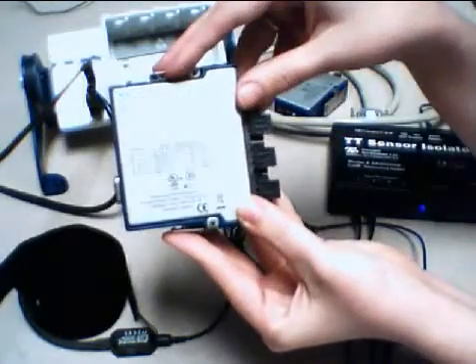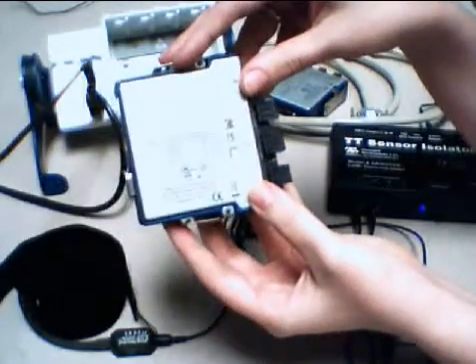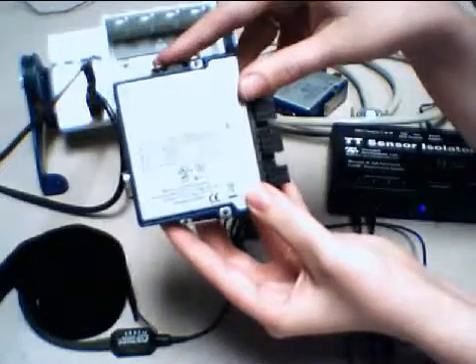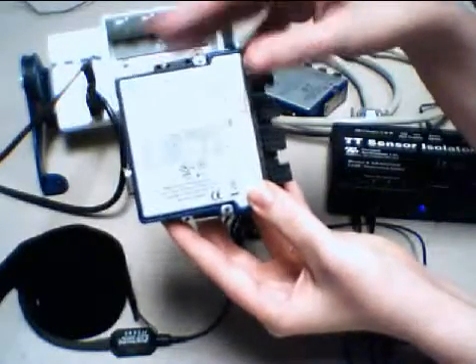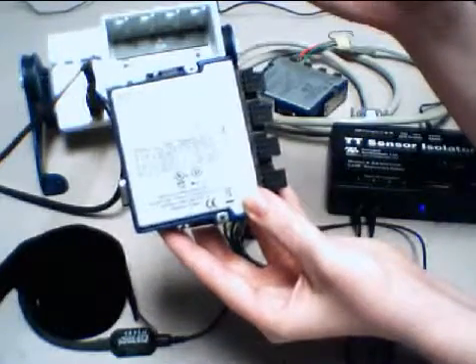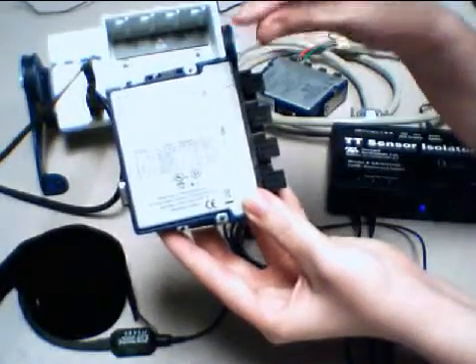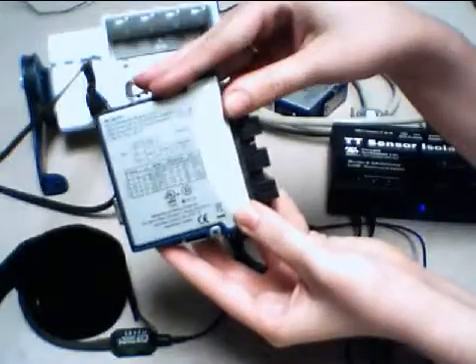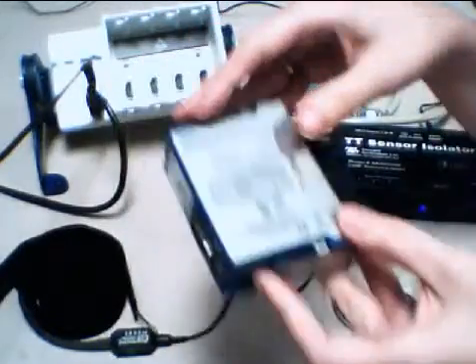Let's say you have maybe a strain gauge or a load cell that a patient is laying on and you want to measure compression as they breathe, that might be another way to do it with this module.